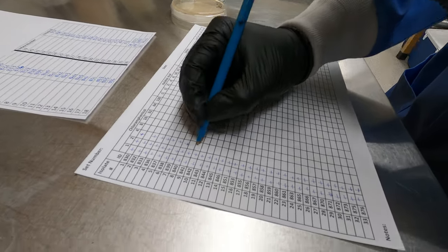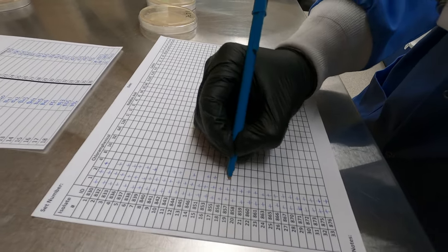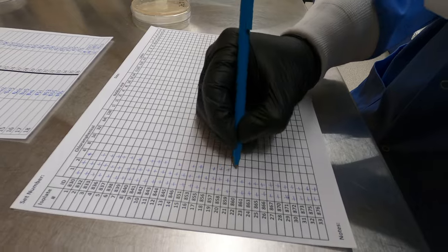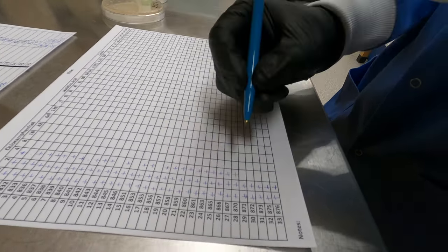Finally, using this data, we determine each organism's MIC. We can then categorically describe an isolate as susceptible or resistant by comparing our results with the CLSI or EUCAST resistance breakpoints.